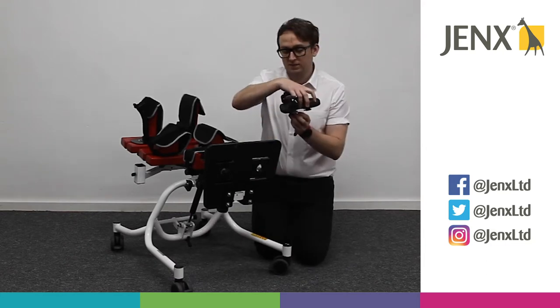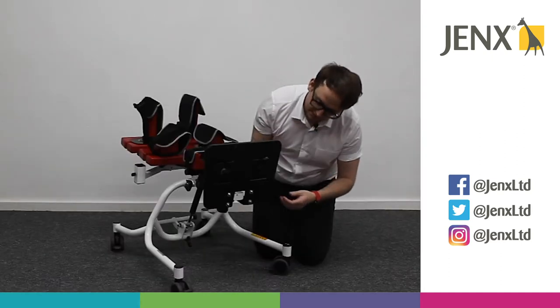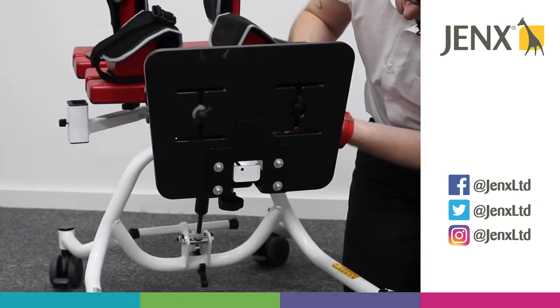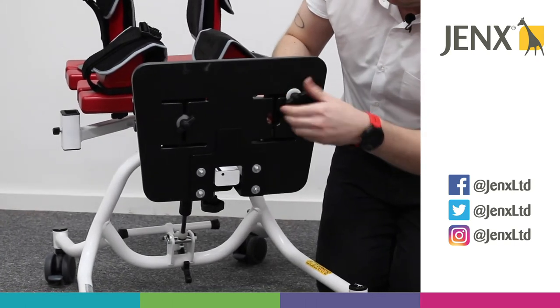To put the sandals into place, you'll see that we have a circular hole here for the whole fitting to fit through. It's as simple as pushing it through with the washers in place and then tightening it wherever you need the sandal to rest.